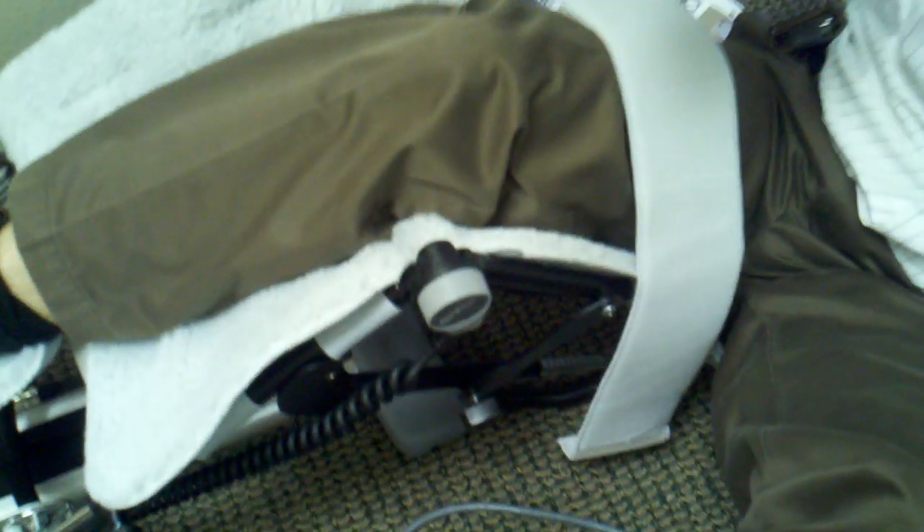You can see that it is working — very quiet and it does have certain settings. The comfort of this sheepskin is very comfortable. The strap comes right here and this is a separate piece that you would just attach. This has various settings: you can set it to a range of motion that you're lacking, and it goes in and out of that range. Or you can set it to move from extension to flexion and back.